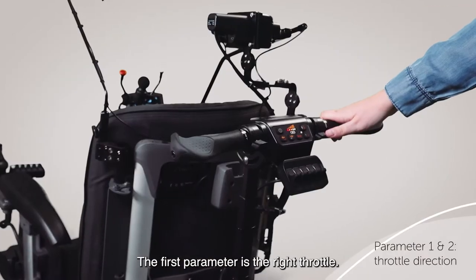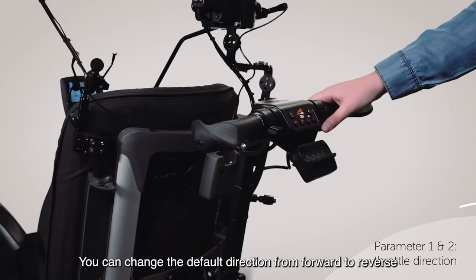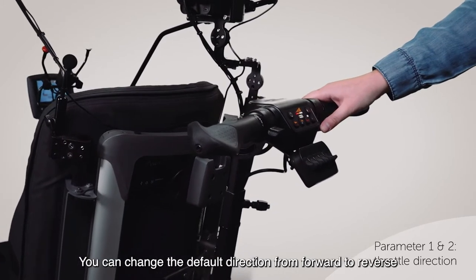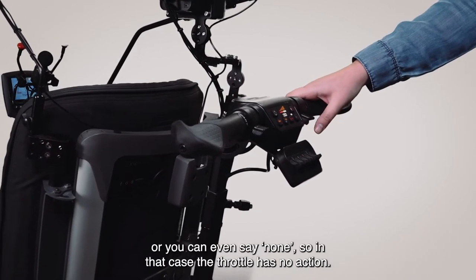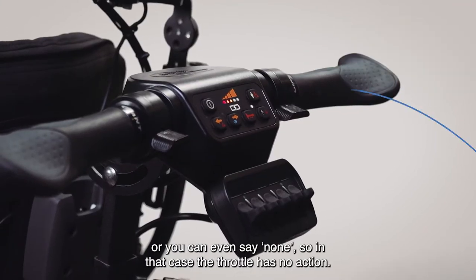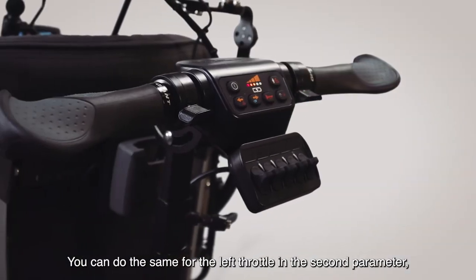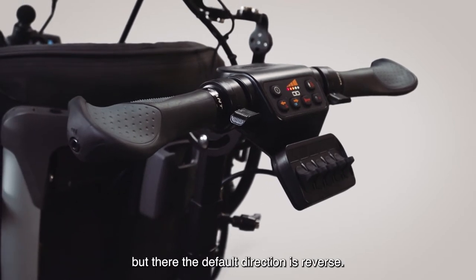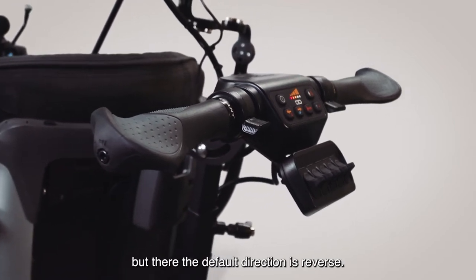The first parameter is the right throttle. You can change the default direction from forward to reverse, or you can set it to none, in which case the throttle has no action. You can do the same for the left throttle in the second parameter, but there the default direction is reverse.